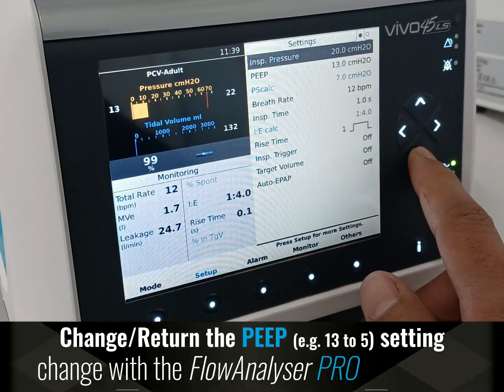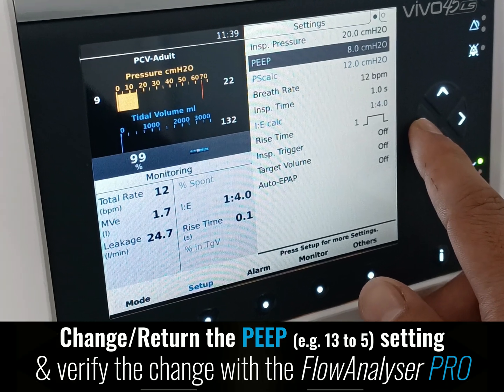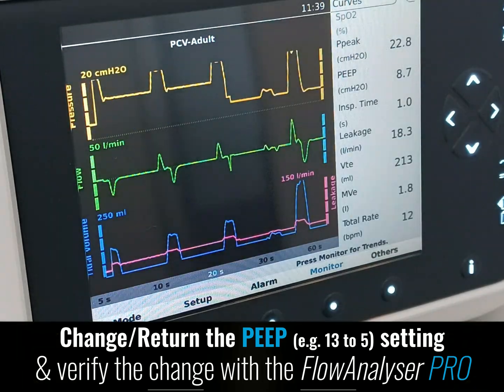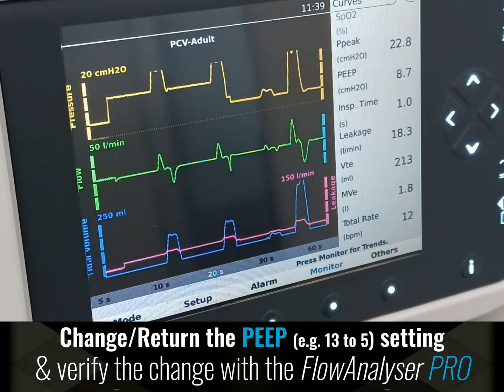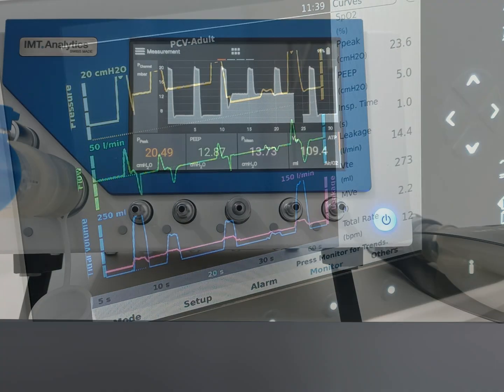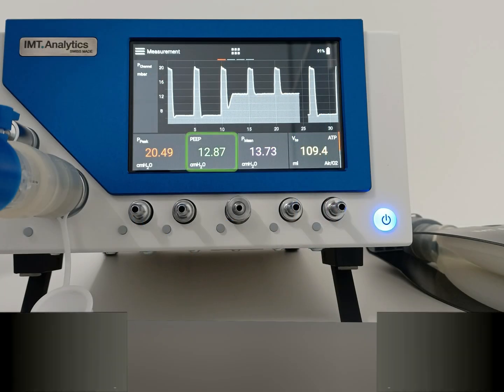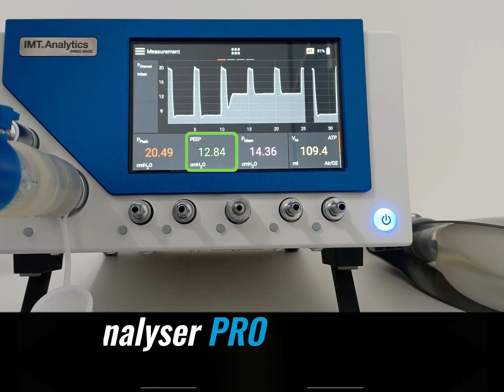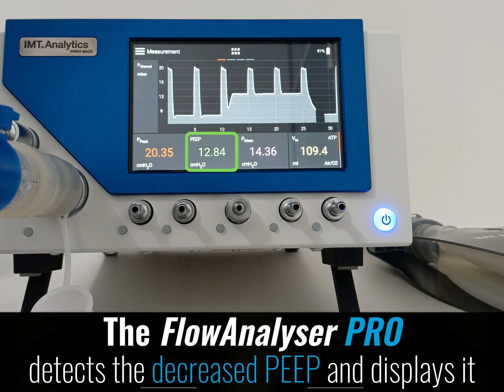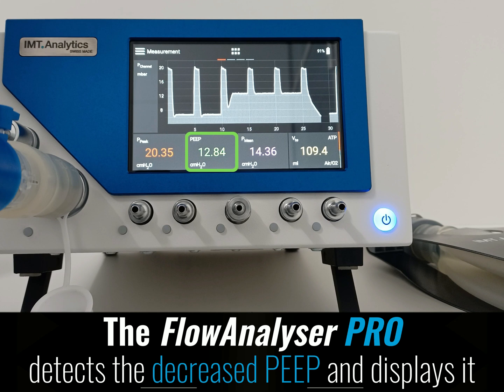Change and return the PEEP setting from 13 to 5, and verify the change with the analyzer. The Flow Analyzer Pro detects the decreased PEEP and displays it.